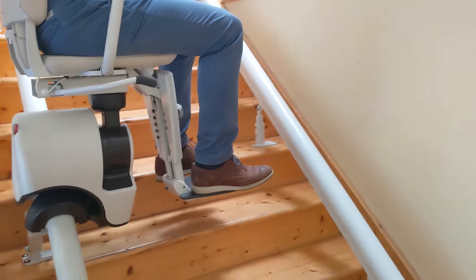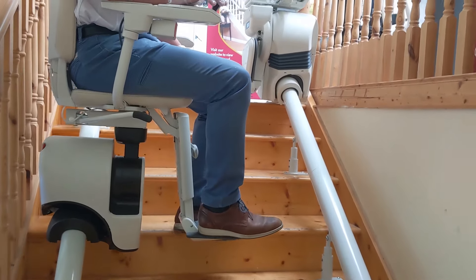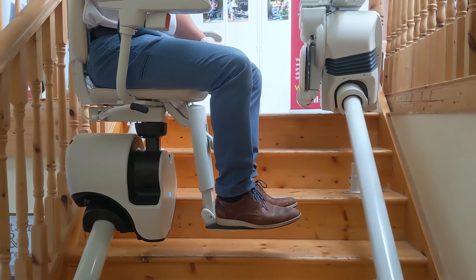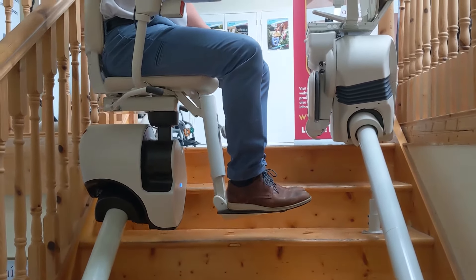This also has a cut-out safety feature — so if my feet were left in the middle of the stairs and I put my foot down, it would cut out. I'll show you the safety feature now, and then it'll run on again once it's clear.